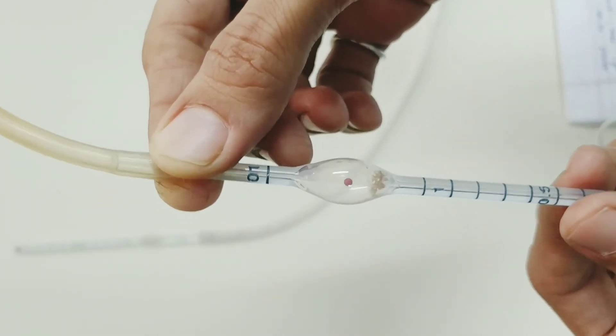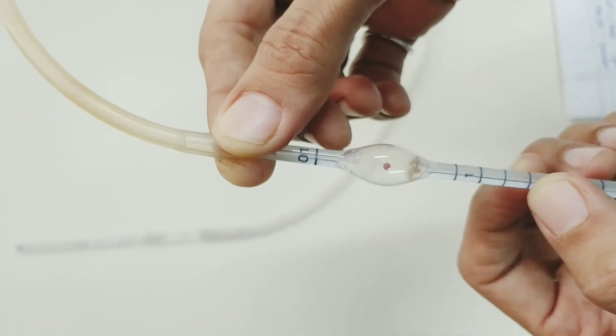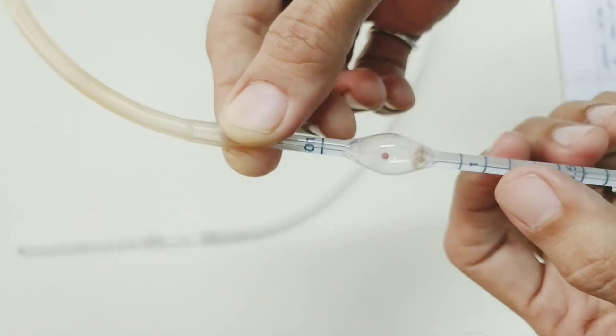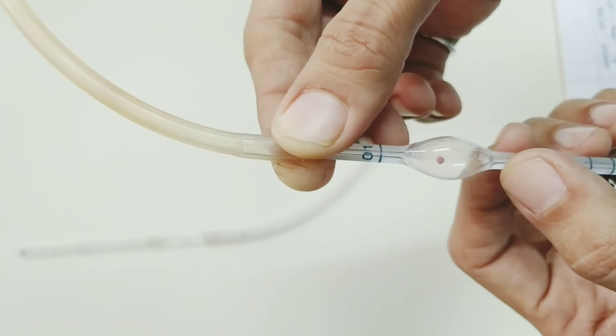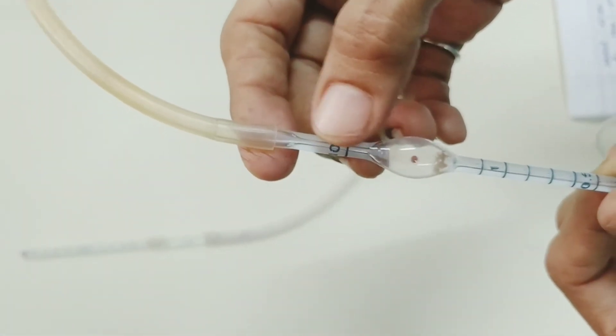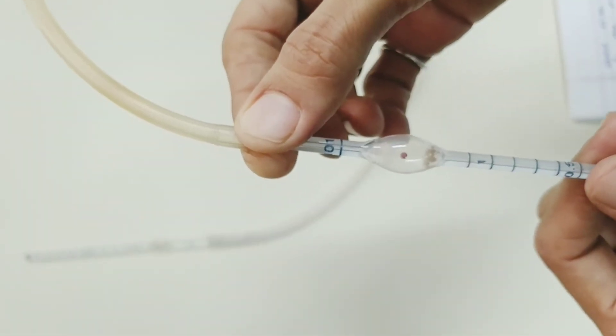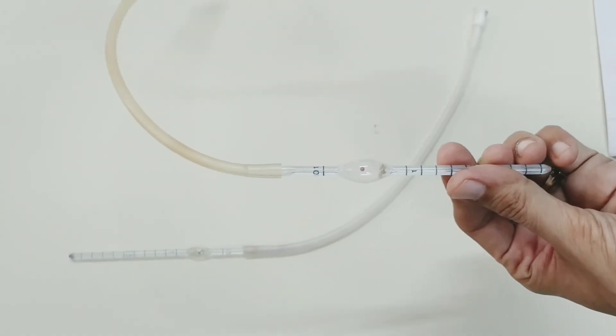The volume 0.5 means half the volume from the tip to the mark 0.5, and one volume from the tip to one. 101 means tip to 101.